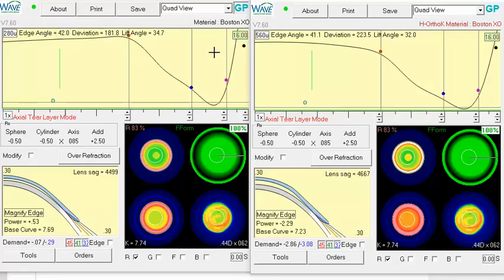If we look at the two designs I have up, the one on the left is your original fourth design, the one on the right is your fifth design. It looks like you did accomplish that centrally, you increased the clearance centrally.